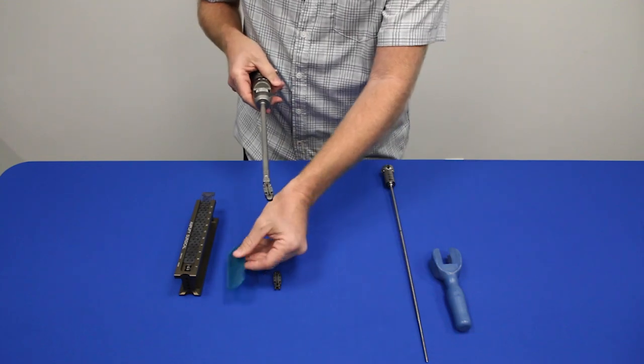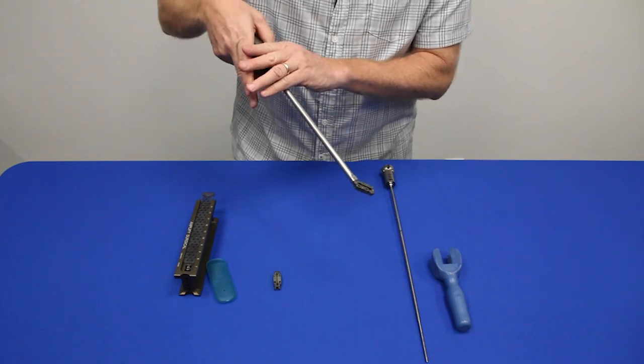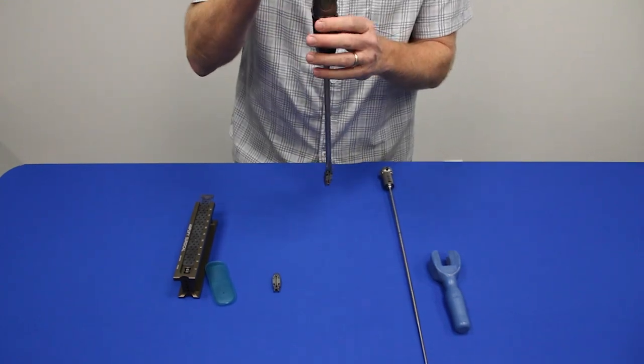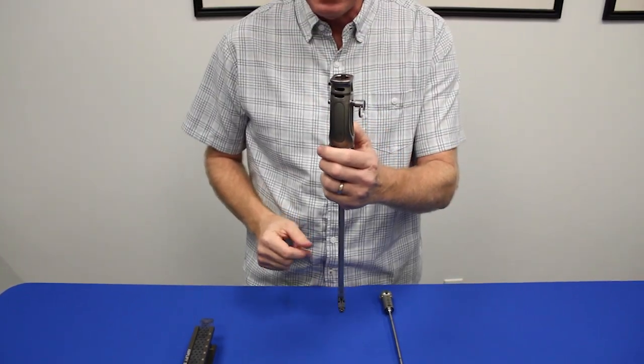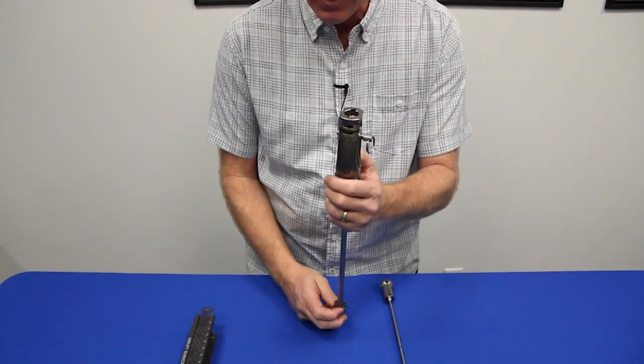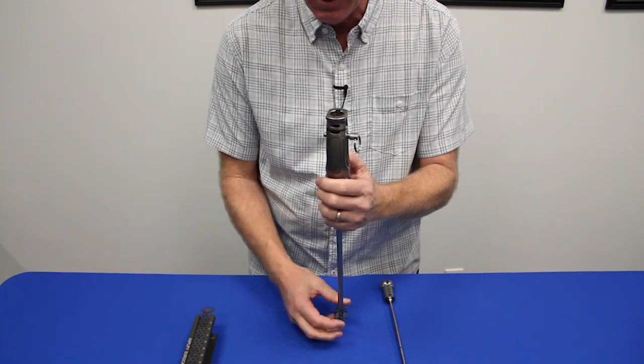Then you can take the sheath off or leave it on, doesn't matter. But for demo purposes, I'm going to take it off. I'm going to have you turn the implant upside down. Don't rest it on anything because that will expand the implant. We don't want to do that.